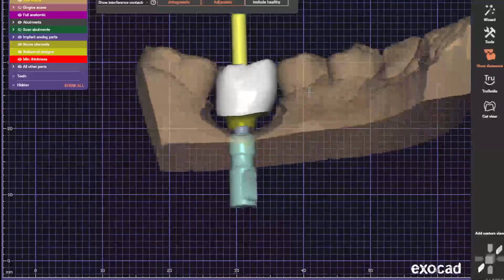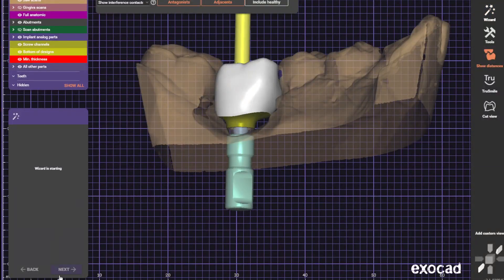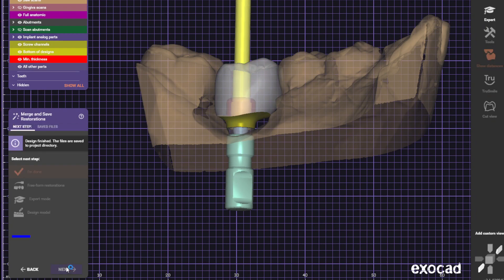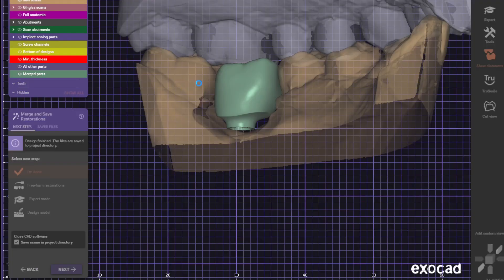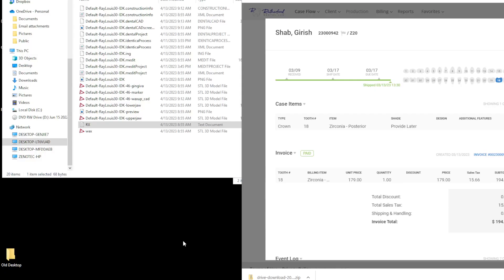And there's the crown. We'll cut the hole. Alright, let me know if you have any questions. I'll do these—I don't mind, doesn't take any time. So let me know what you think.